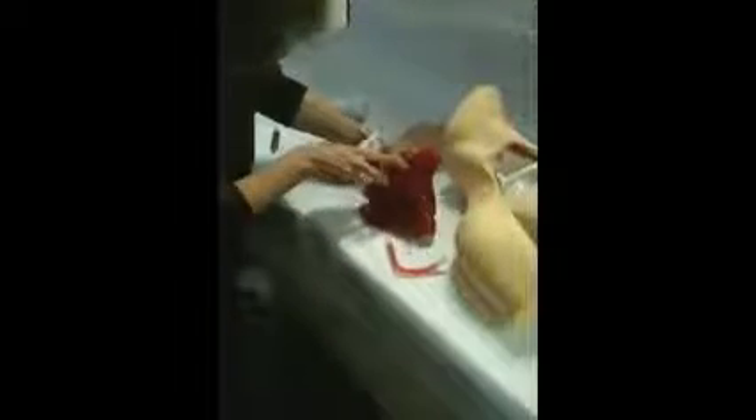You then lubricate the muscle as it makes it easier to get the artery in. You look for the three holes on the back surface — the part that comes up. It has three holes on the surface. You put some lubricant into one of the bigger holes, squeeze it out, and then massage it through with your finger so that you can see the lubricant coming through the other holes.